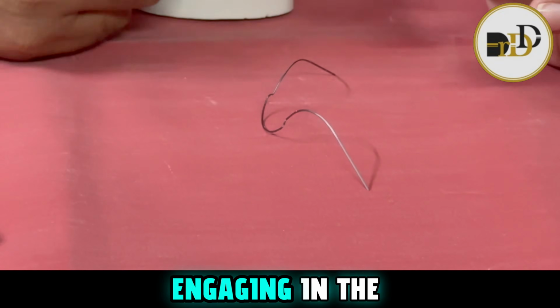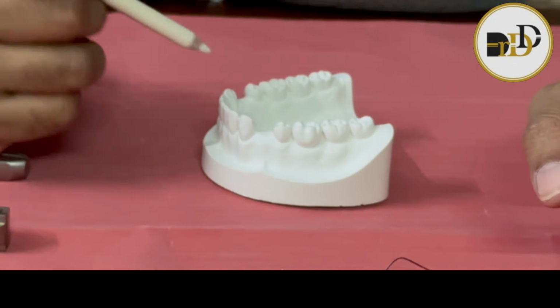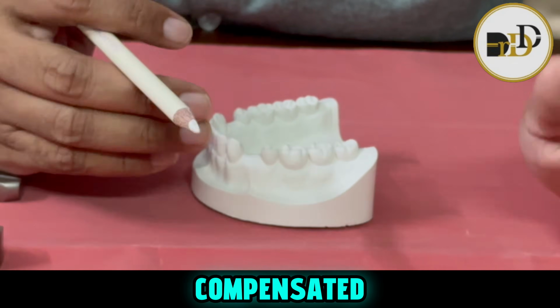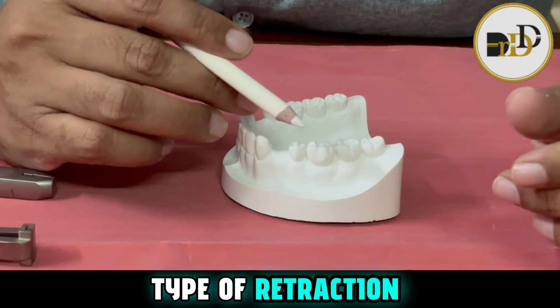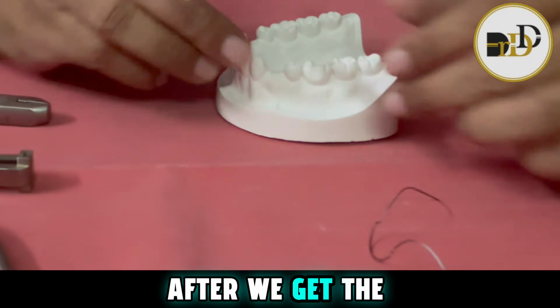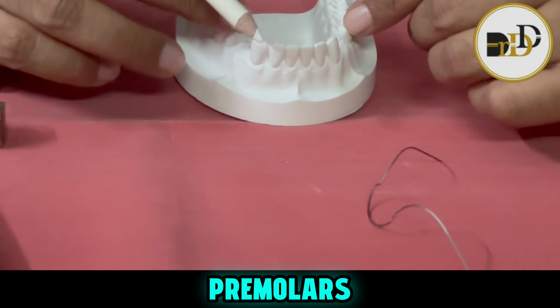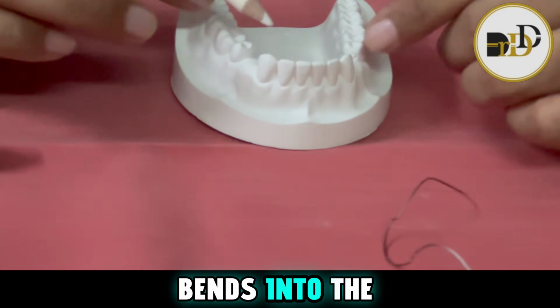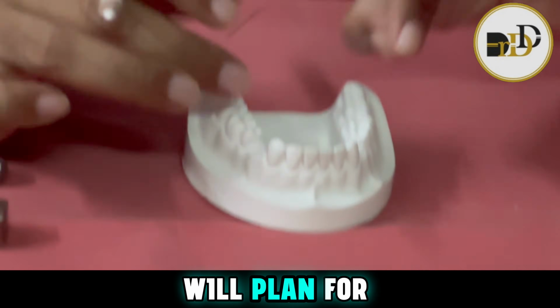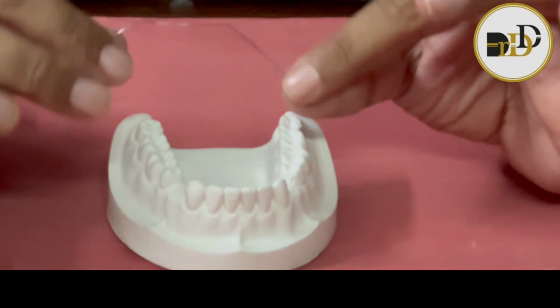When we engage it in the patient and give a retraction force, automatically these two things are compensated and we get a bodily type of retraction without any adverse effect on the molars. After we complete the retraction, we do the engagement of the premolars and finishing bends in the remaining wire component. So this is how we plan for space closure in extraction conditions.